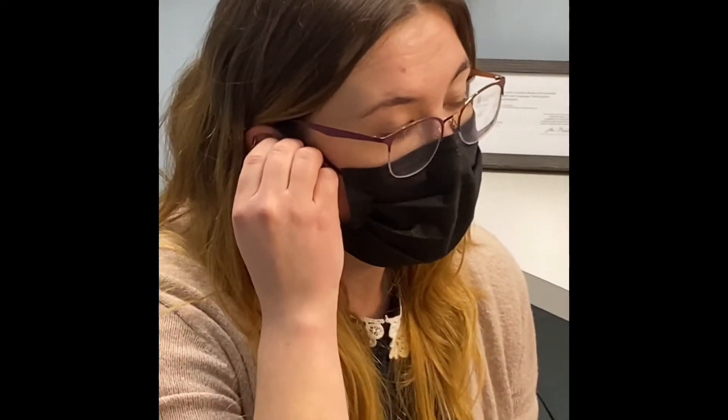They're bulky in the ear, and for me these actually made people sound further away. I seem to have trouble with lower tones, and I would say that this picks up more trouble for me. I tried to adjust it in the app, but I found that I didn't notice a big difference.